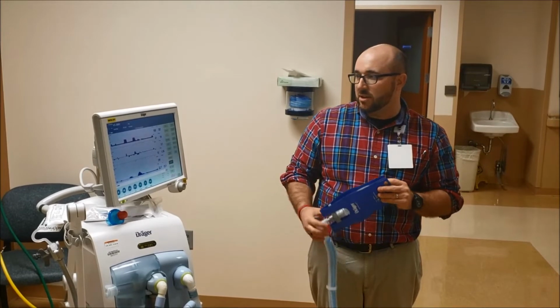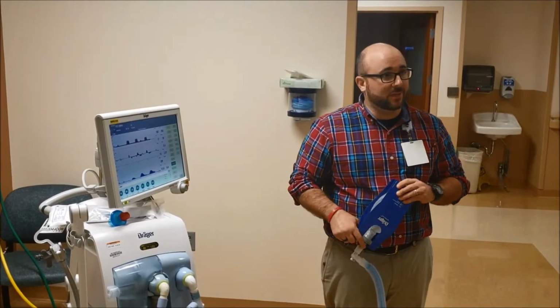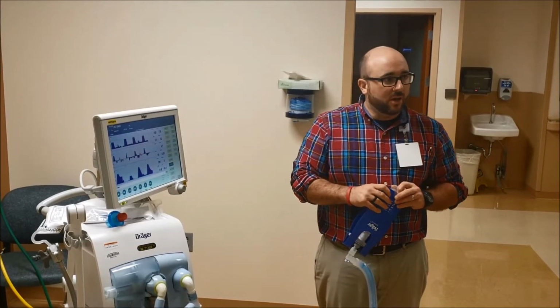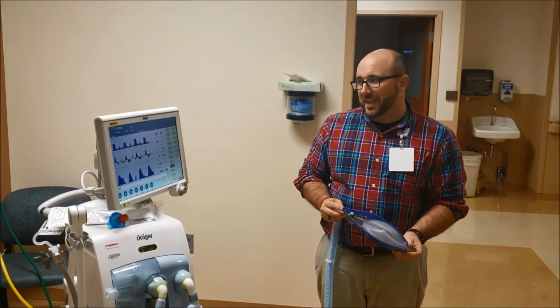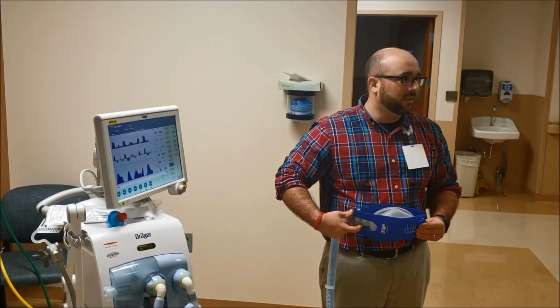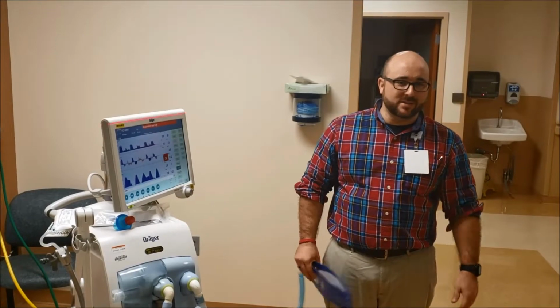You can still see this is still on. That will definitely mess with your blood gas. It's going to mess with your PaO2 and your blood gas. It's not going to mess with acid-base balance at all, unless you have them off for quite a while. So usually we like to have at least 15-20 minutes after an O2 enrichment before we do a blood gas. Ideally, all the books say 30 minutes to an hour. That's not realistic.